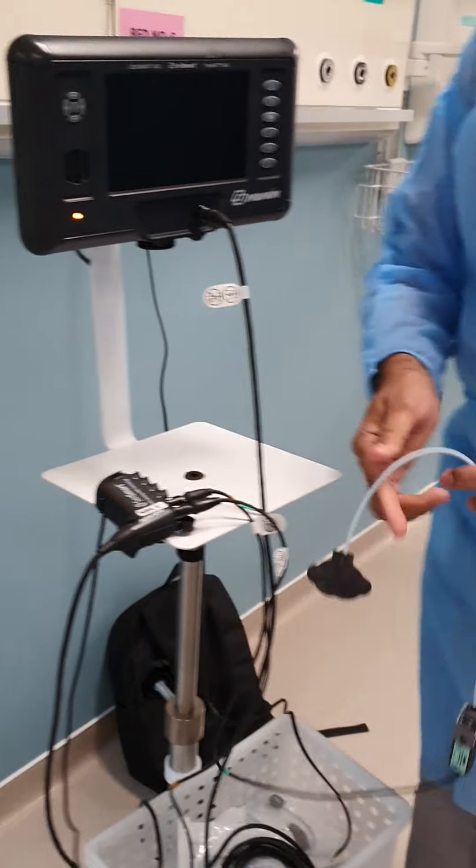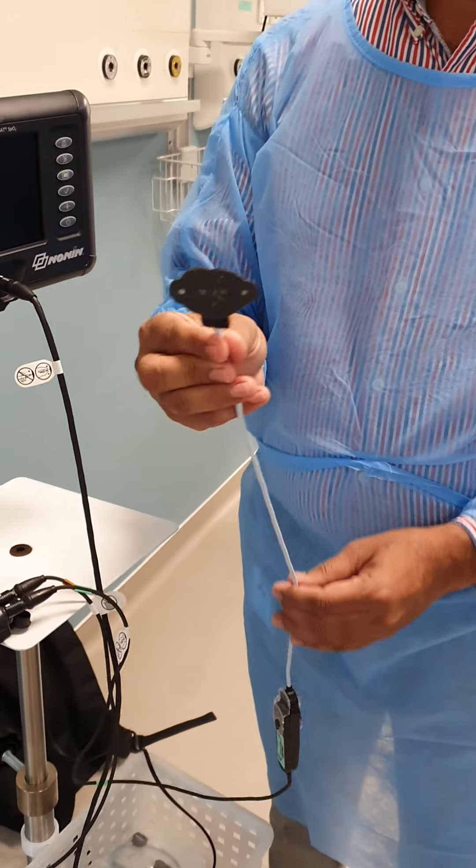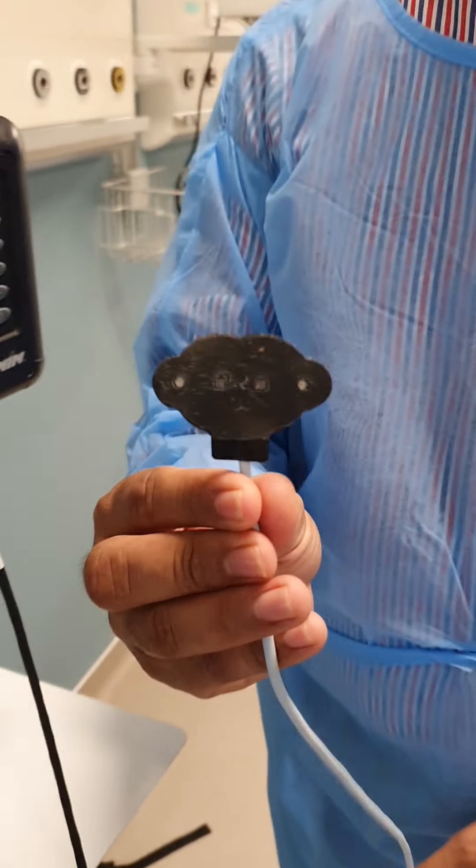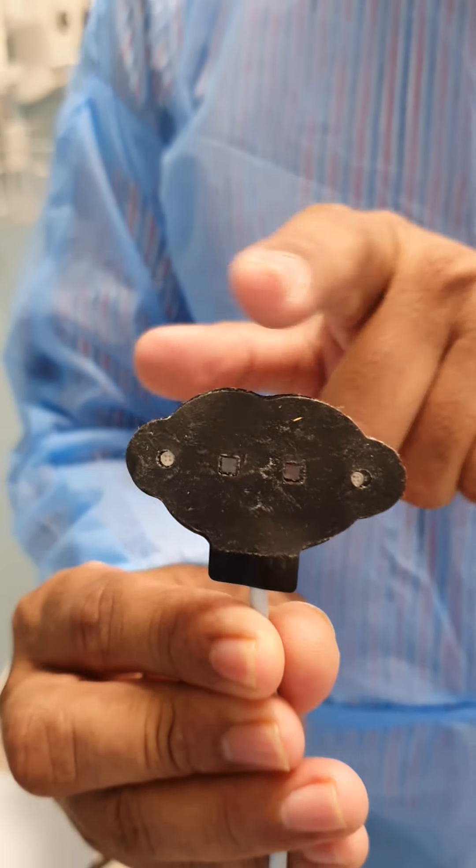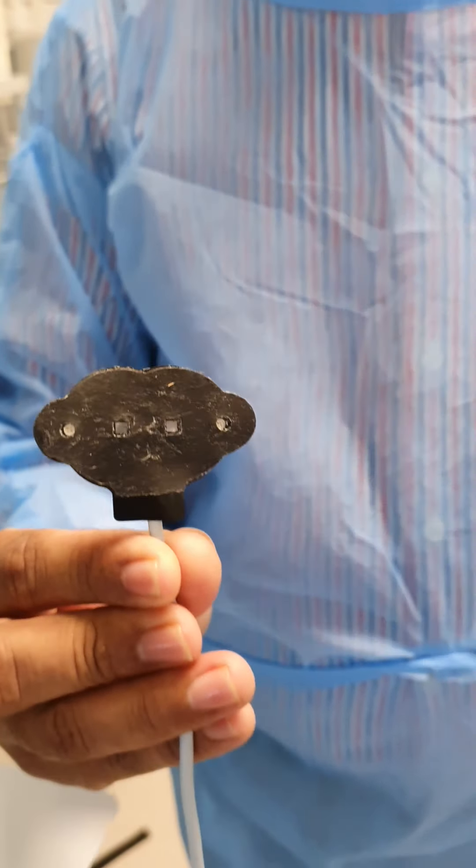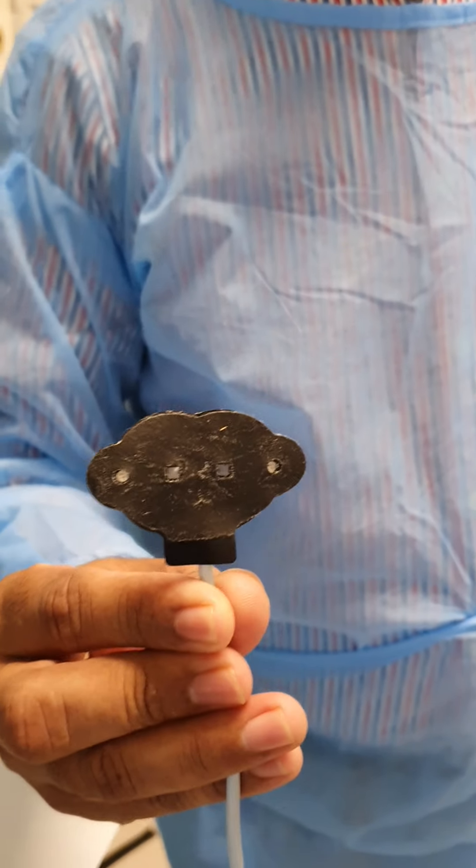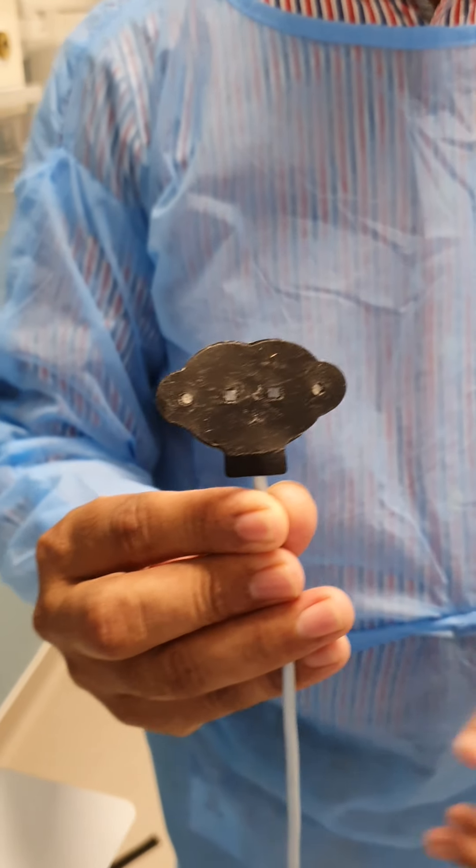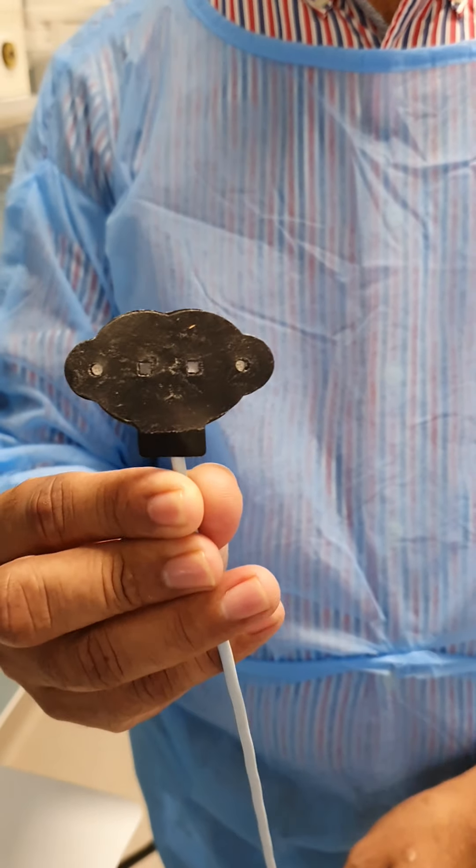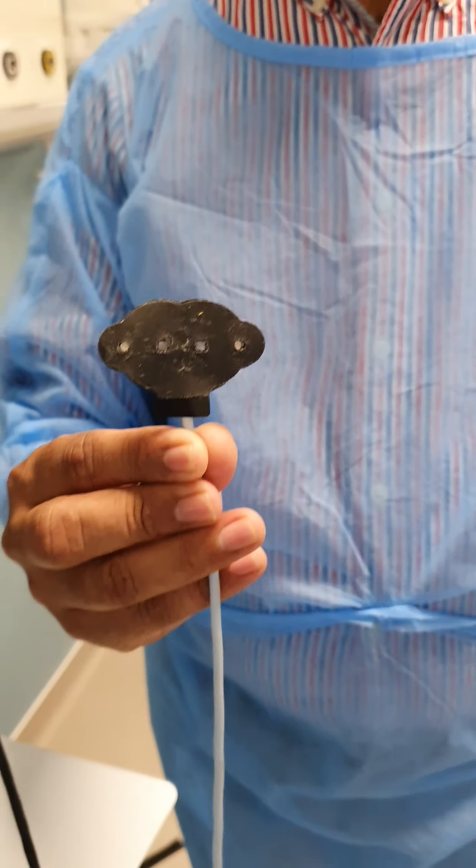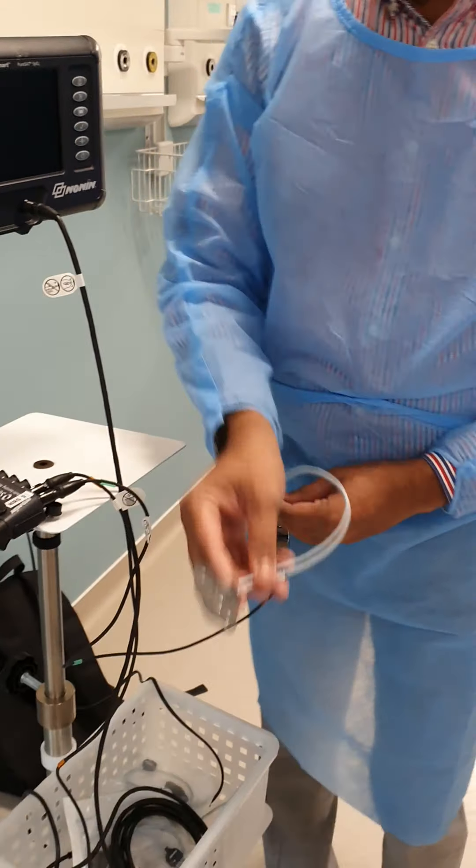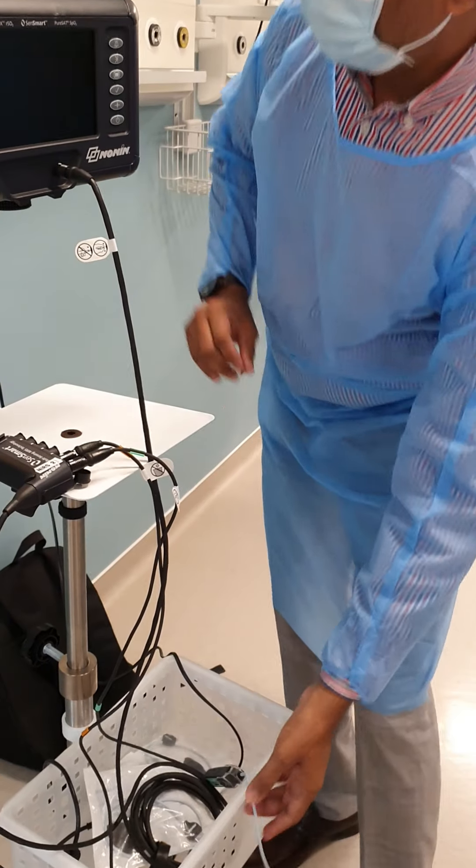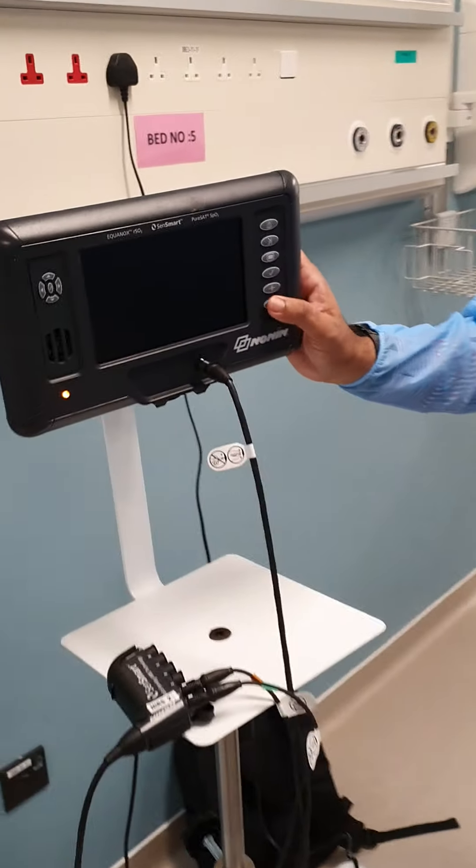Coming back to the technology, this is the sensor we are using. You can see there are two LEDs and two detectors. That is where you have a wider area of measurement for the baby and the accuracy is far more. The R&D has done work where you have more accuracy using these sensors. So let's switch on the machine.